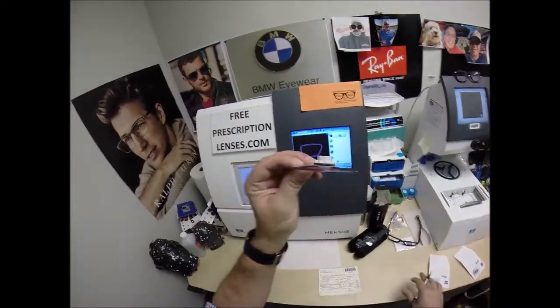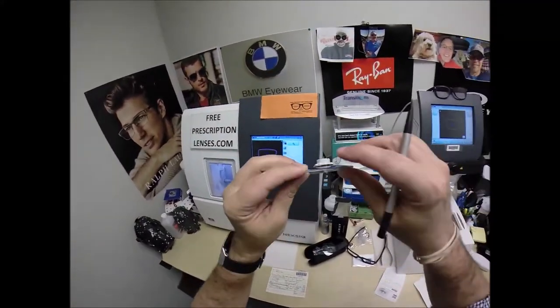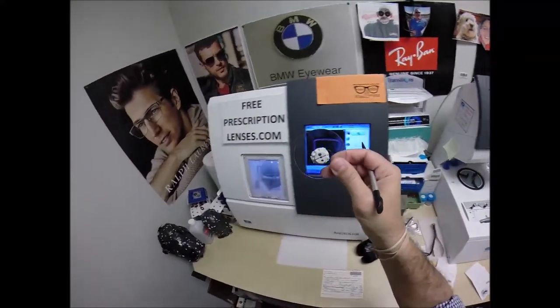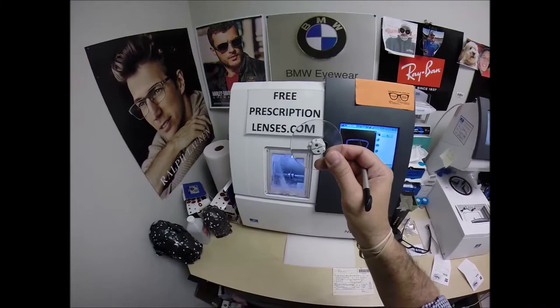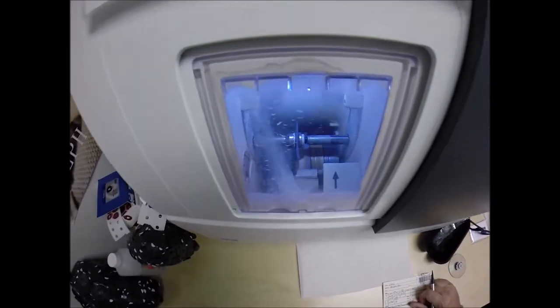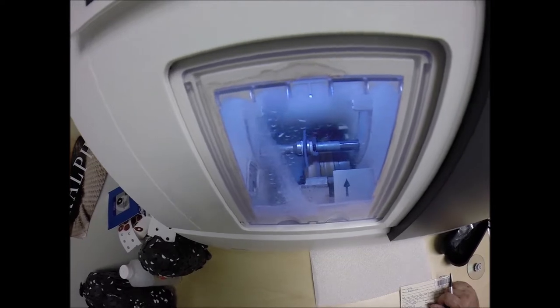Your lenses are made out of polycarbonate, which is 40% thinner and lighter than regular plastic. They're virtually unbreakable — high-impact ballistics-grade lenses — the same lenses our soldiers wear overseas in combat zones to protect their eyes from shrapnel and from flying debris. It also has 100% UVA and UVB protection, as well as a premium scratch coating.